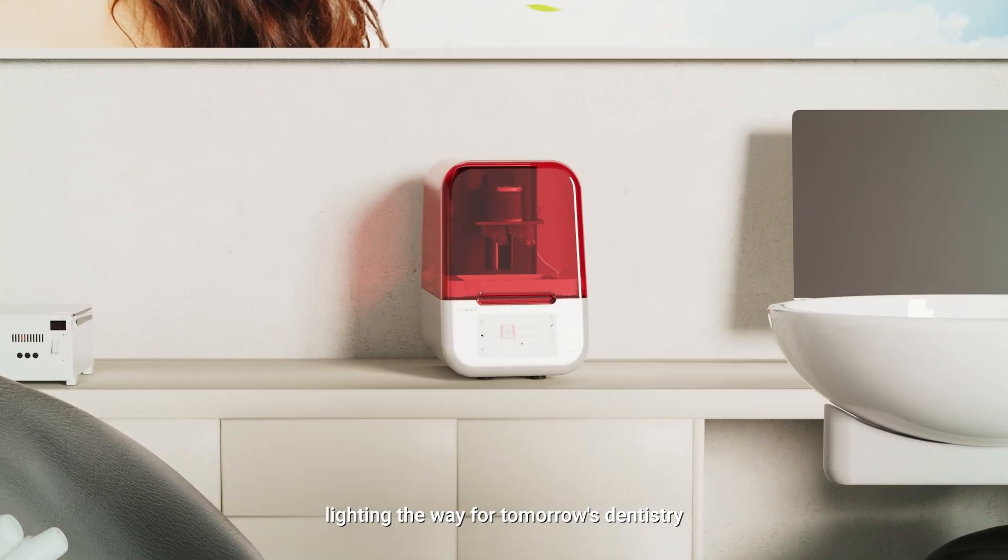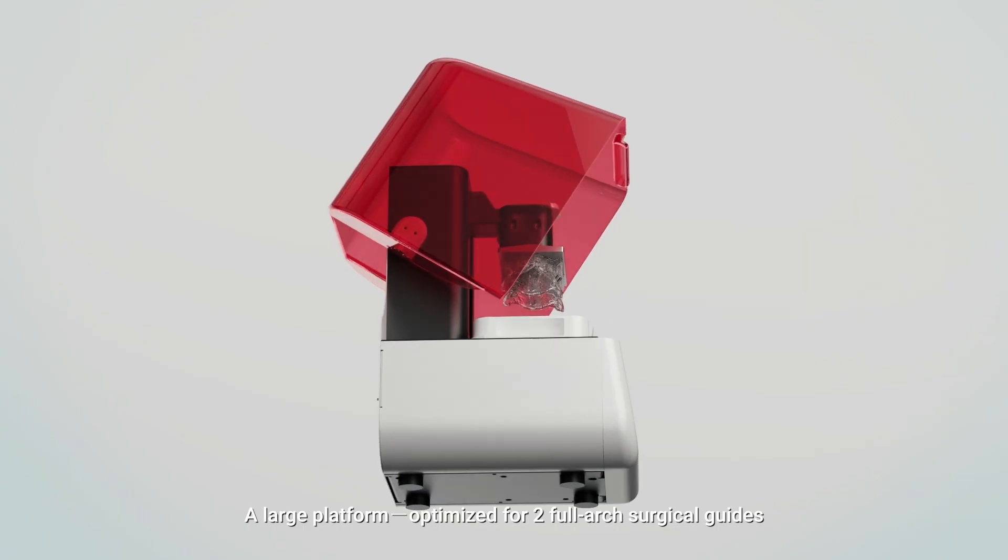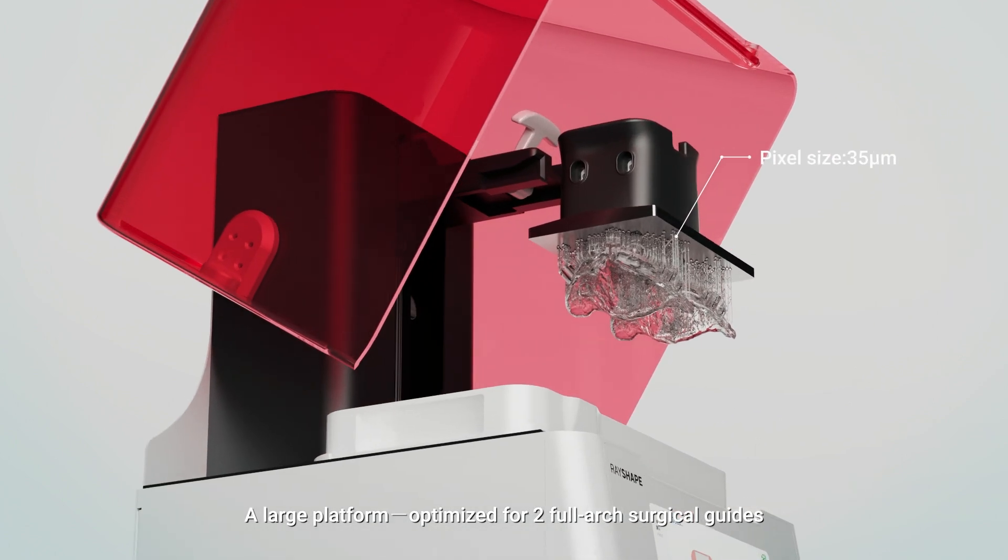Lighting the way for tomorrow's dentistry. A large platform, optimized for two full-arch surgical guides.